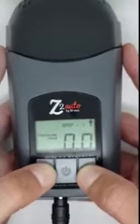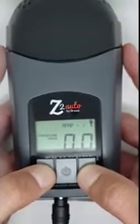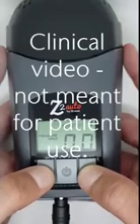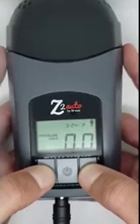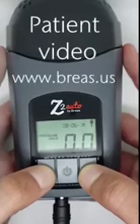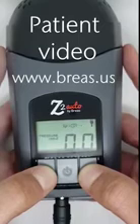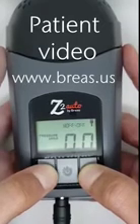This video will last approximately 11 minutes and is a clinical video that is not meant for patient use, as it will detail how to change the pressure of the unit. However, there is a comfort settings video available on our website at www.breas.us that you can direct a patient to that details how to change the comfort settings.